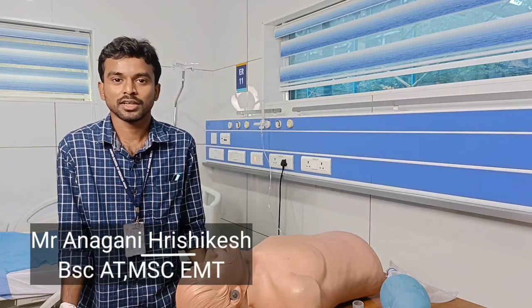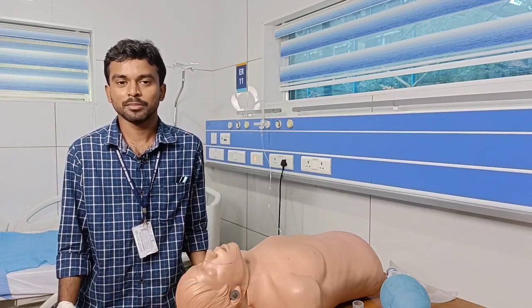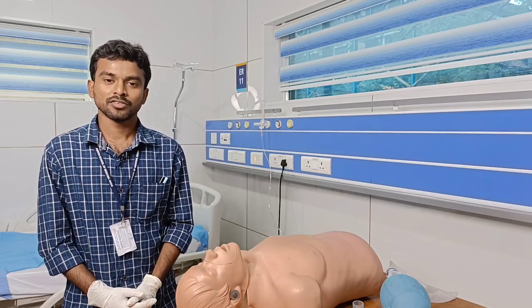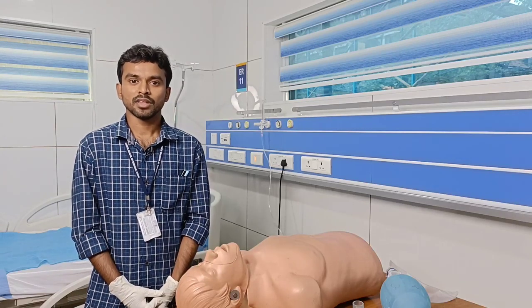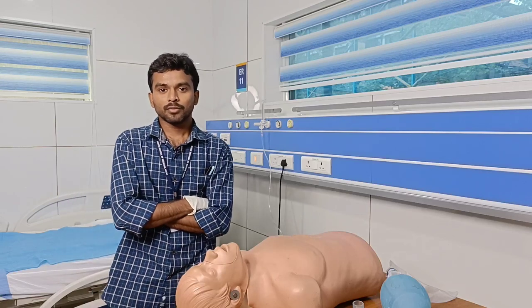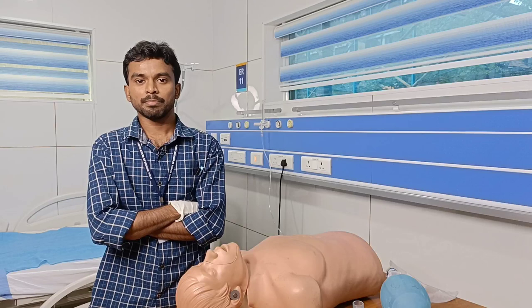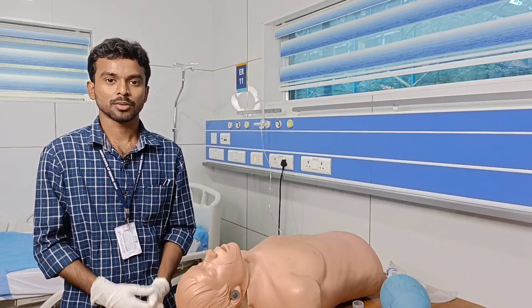In this class we will be discussing the definition of bag mask ventilation, followed by the indications, the components or parts, the predictors of difficult bag mask ventilation, how to perform the procedure, the complications, contraindications, and the difficult bag mask ventilation mnemonic.